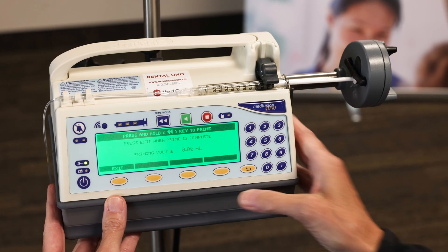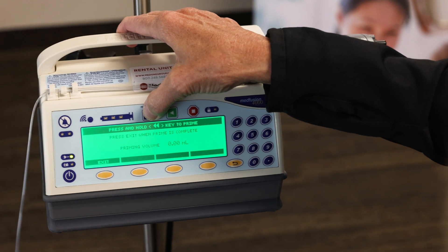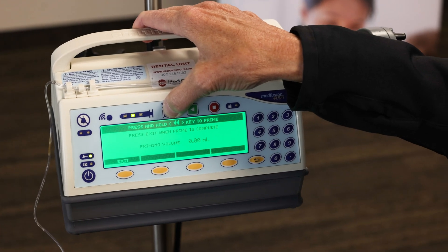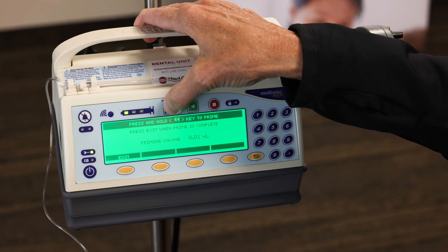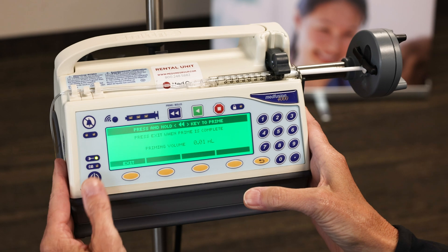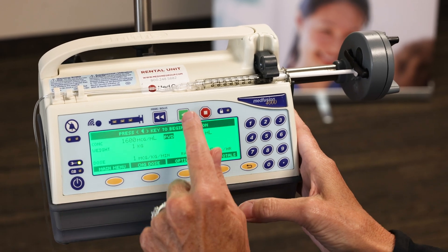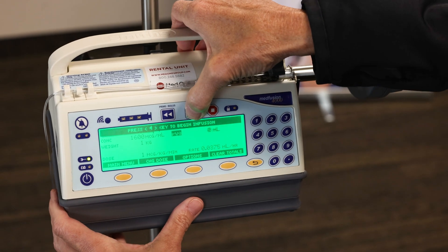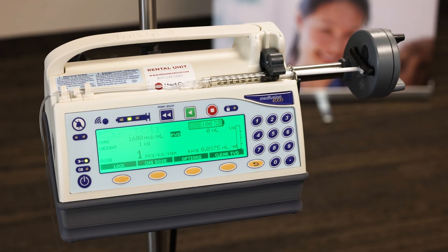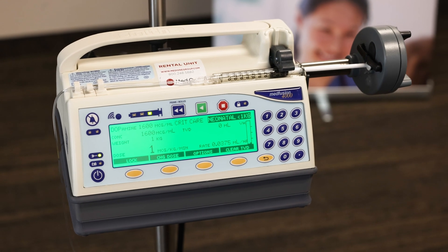Here's your prime feature. We're going to press and hold the prime button until we see our fluid come to the end of our set. Then we will let go once our prime is complete and we see fluid. Then you'll press exit. Now we're going to go up to our green start key and press it, and then we should see our syringe light up right to left, indicating we're infusing.